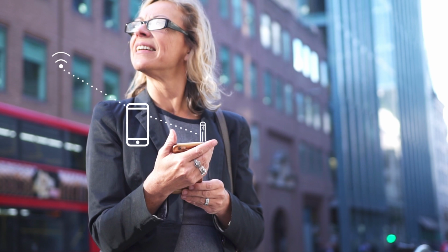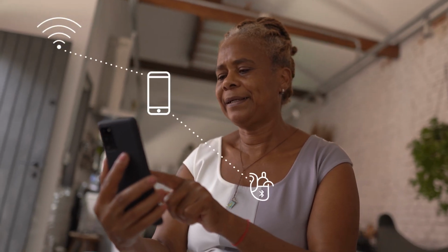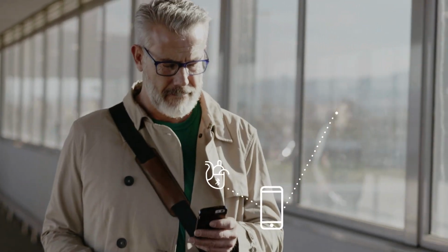Congratulations, your heart device is now paired with the MyCareLink Heart mobile app. The MyCareLink Heart mobile app is designed to give you greater freedom, convenience, and peace of mind. Continue with your daily life knowing that your heart device is connected to your clinic wherever you go.